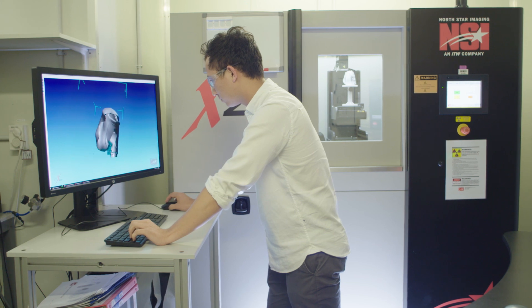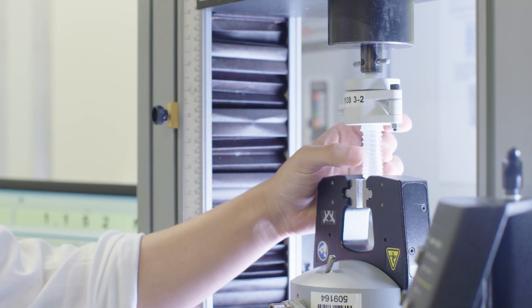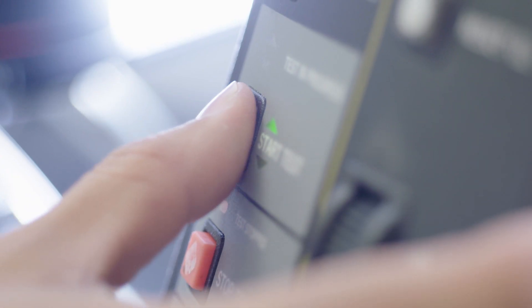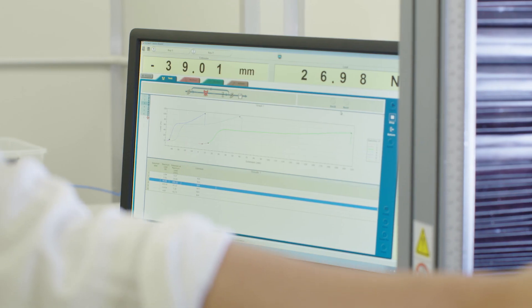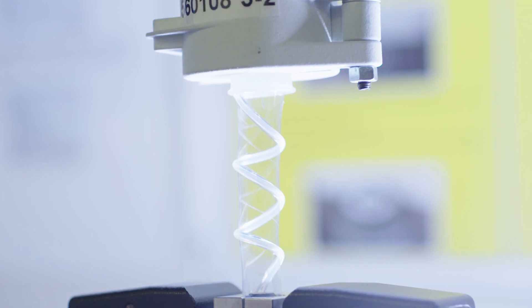The reason that we use such a rigorous testing approach here is that we need to make sure the mask is safe for the patient to use. We have to make sure all parts withstand certain forces and that when it's used in the home for a certain amount of time everything still functions as it should. We had to connect and disconnect the connection points over a thousand times to see if there was any unforeseen wear and tear on the part.